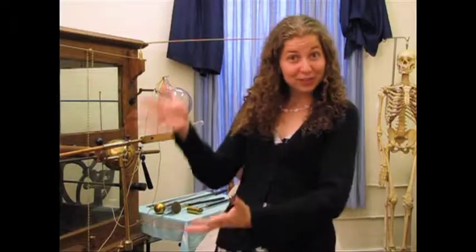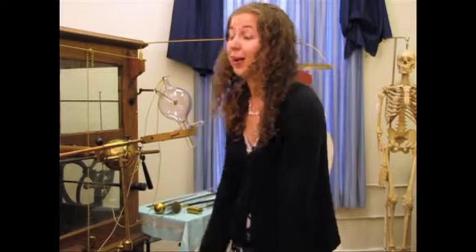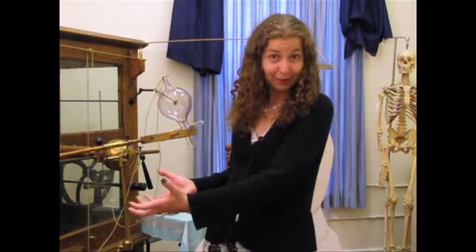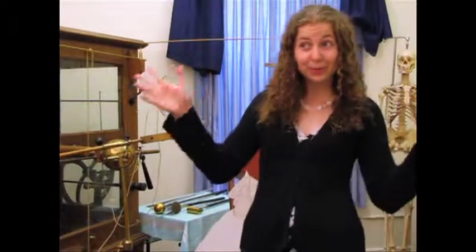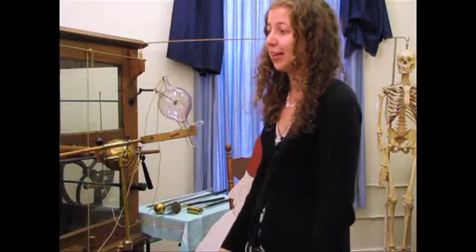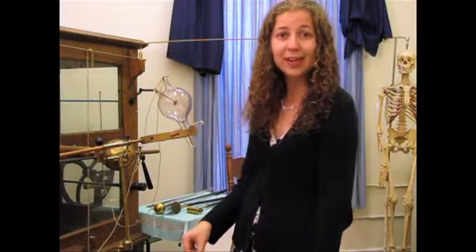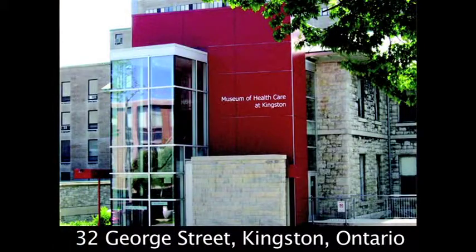Alright, so that's just a little rundown about the static generator and how it was used to do x-rays in the Victorian period. And if you want to learn more, you can come down and look at the whole exhibit here on x-ray and electrotherapy. It's a really underappreciated room. A lot of people sort of pass by. So come on in and we'll have some fun.